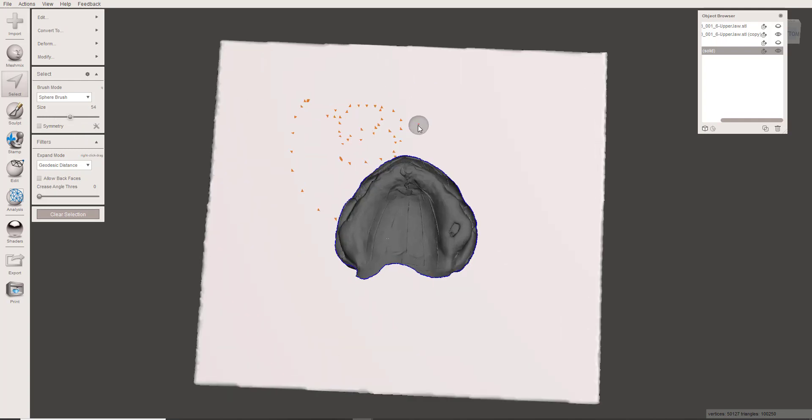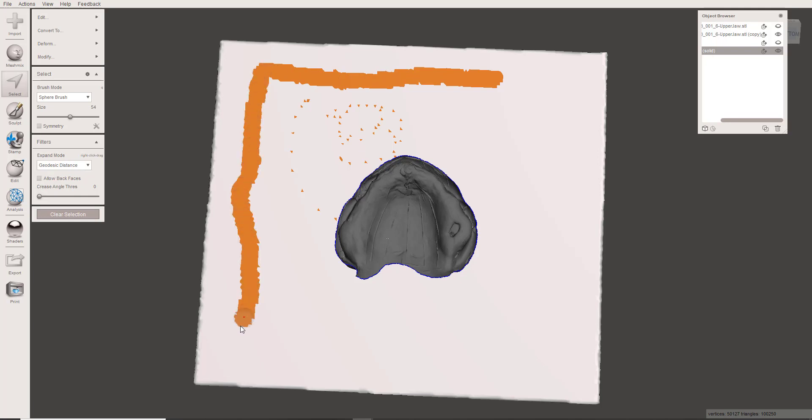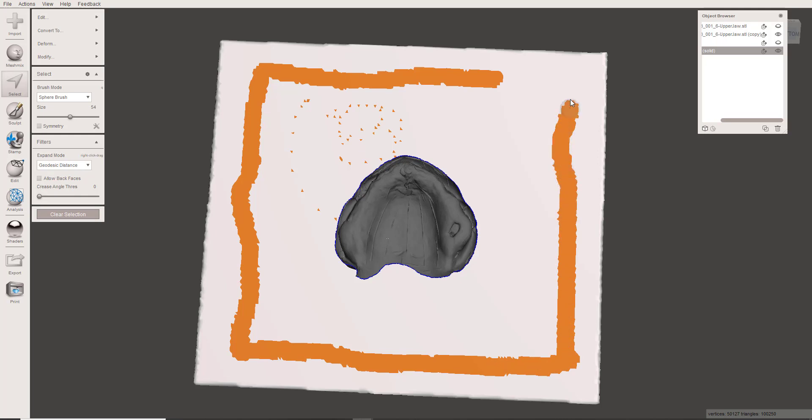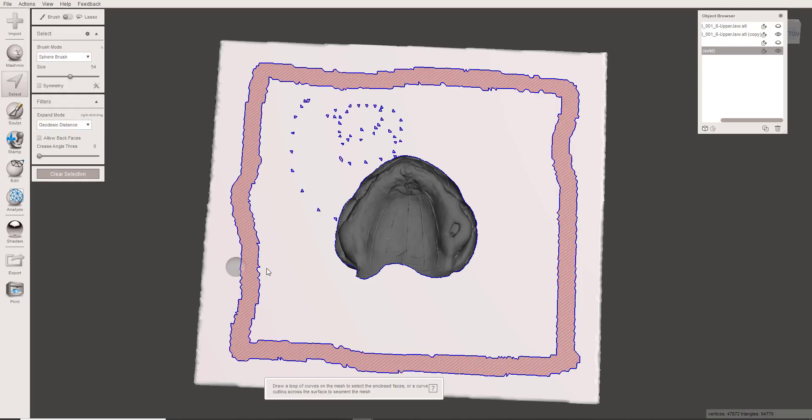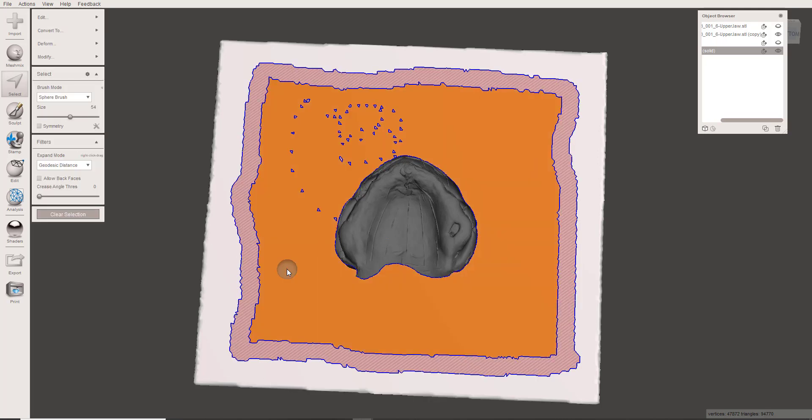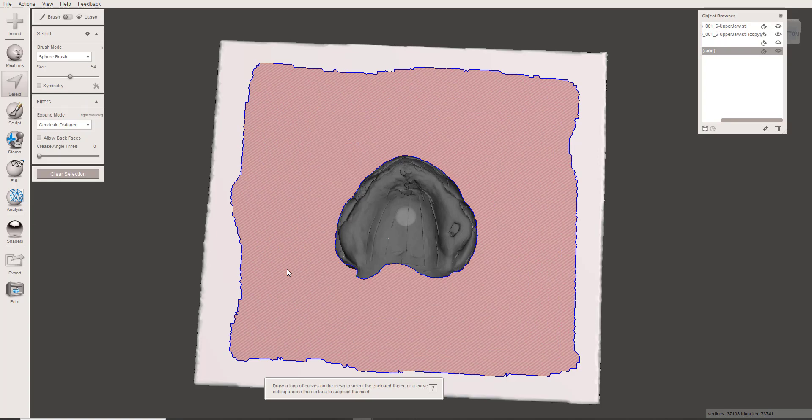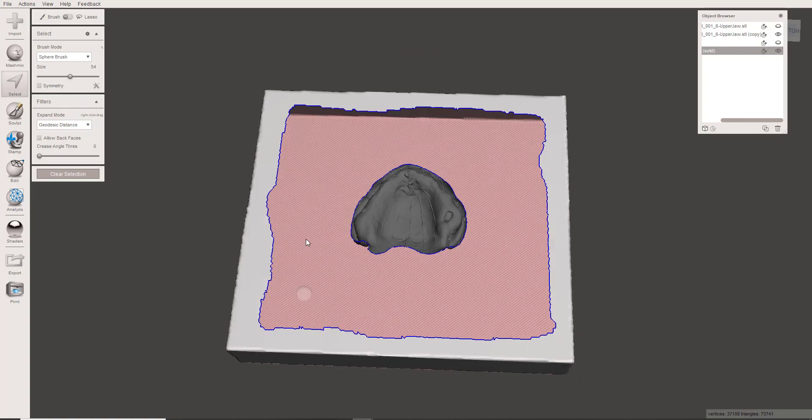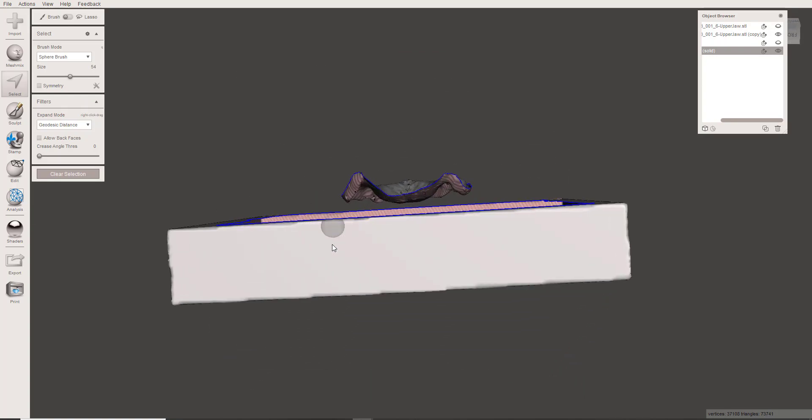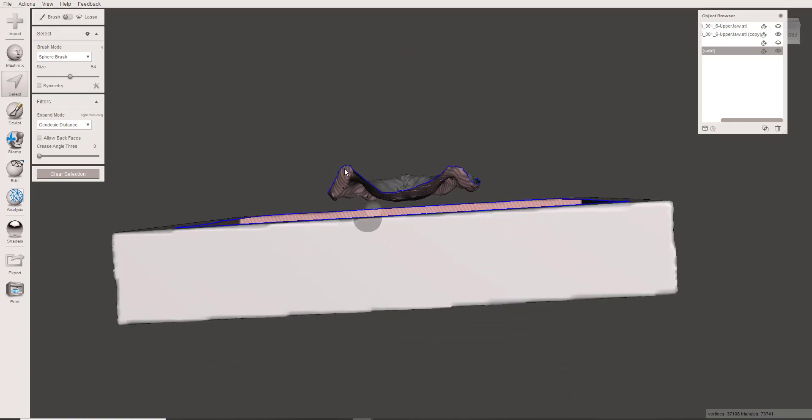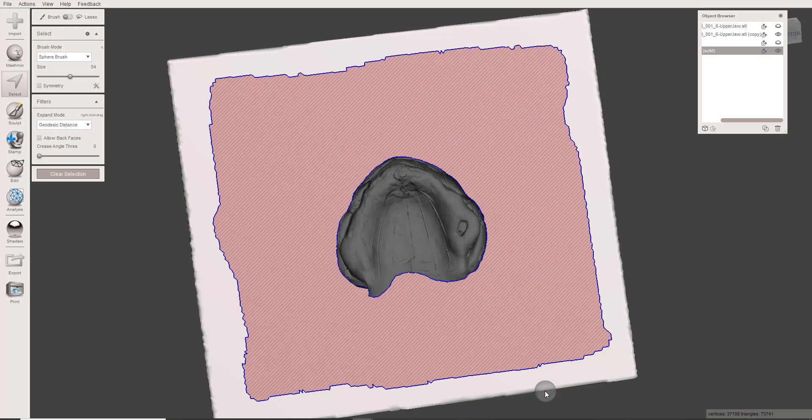What I'm going to do here is I want to create a perimeter. I'll delete that, and then delete the whole inner side. Now what I'm going to do is fuse the borders of the denture out to the borders of this, and that's pretty easy to do.